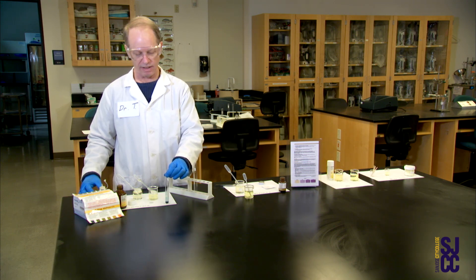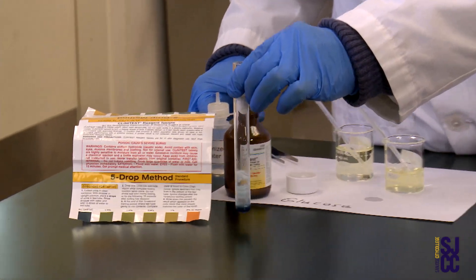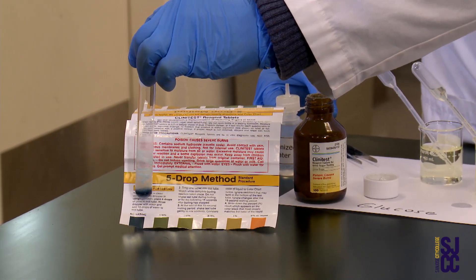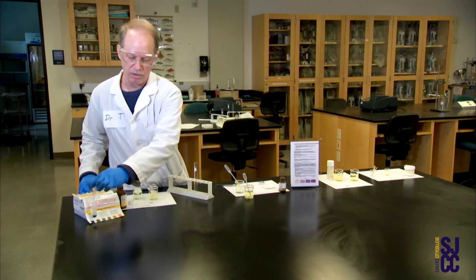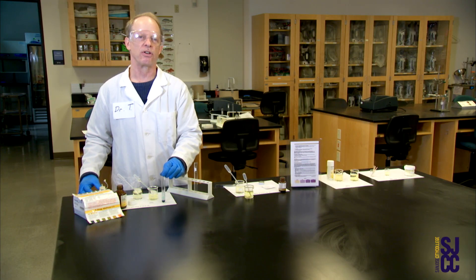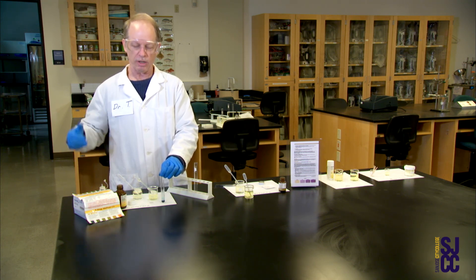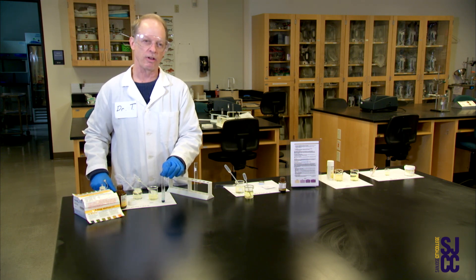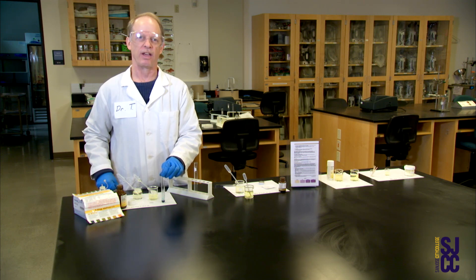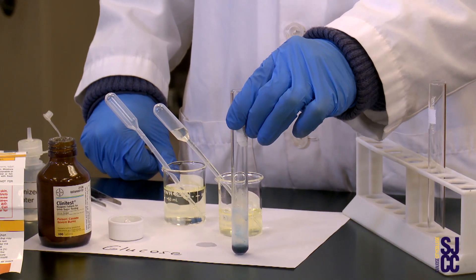What I'm seeing looks like blue to me. I'm going to bring it over to the color chart to match the colors. It looks negative. Blue is negative — it's negative for sugars. No glucose, sucrose, whatever, in this urine. Sometimes people see it fizz and go 'wow, it turned blue,' but that means nothing because it's negative. These tablets have little blue specks in them — they're loaded with copper sulfate, which is blue. So if you got blue, that means no sugar, no reaction.